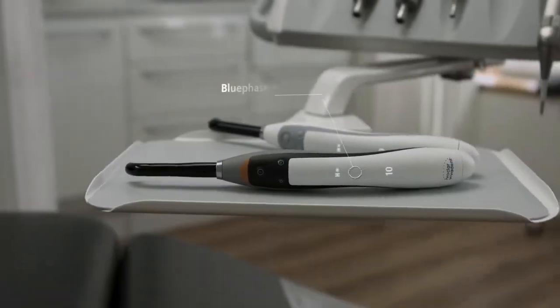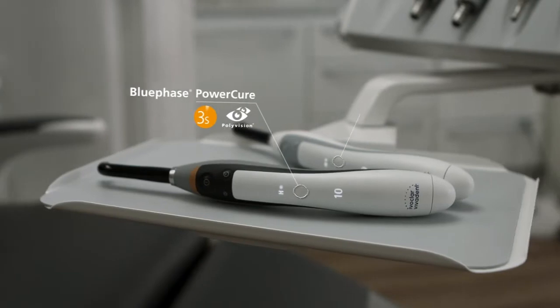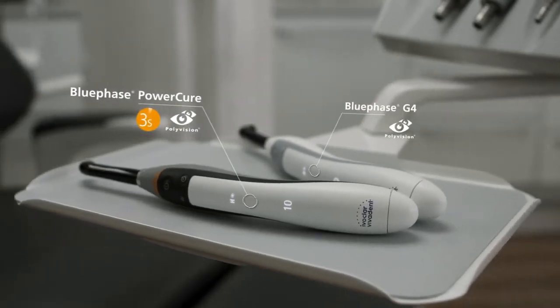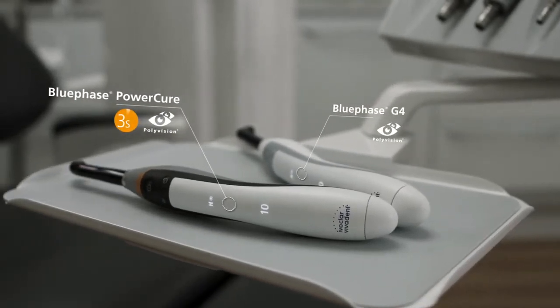Are you looking for a high-performance device that allows you to achieve reliable results and offers extremely short curing times? Try BluePhase PowerCure or BluePhase G4.